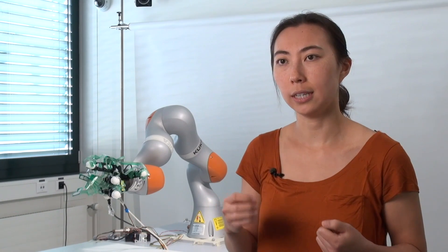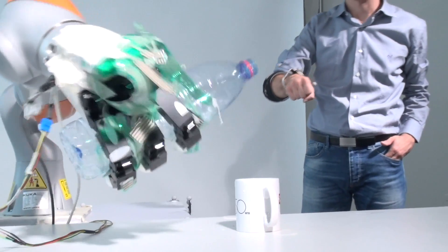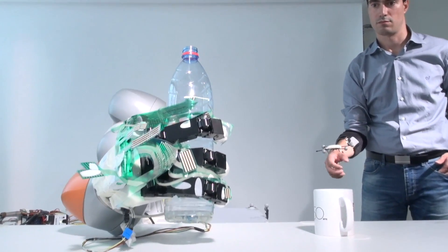Now if the user wants to release an object, all he or she has to do is try to open up their hand and the robotic controller turns off and all of the control goes back to the user.